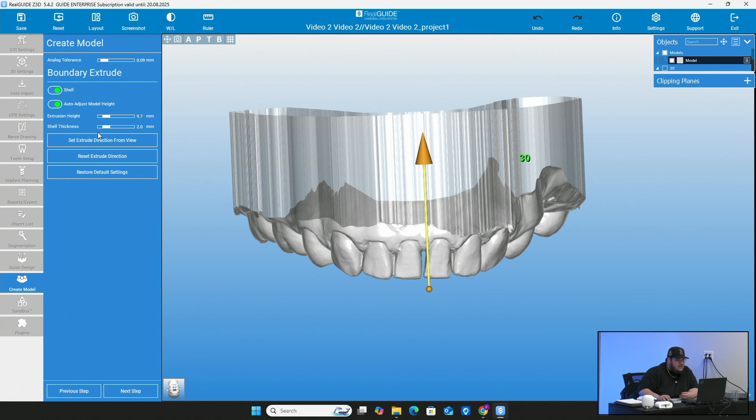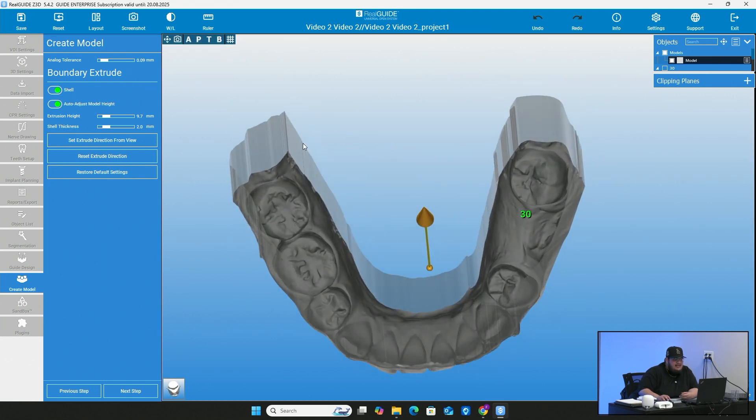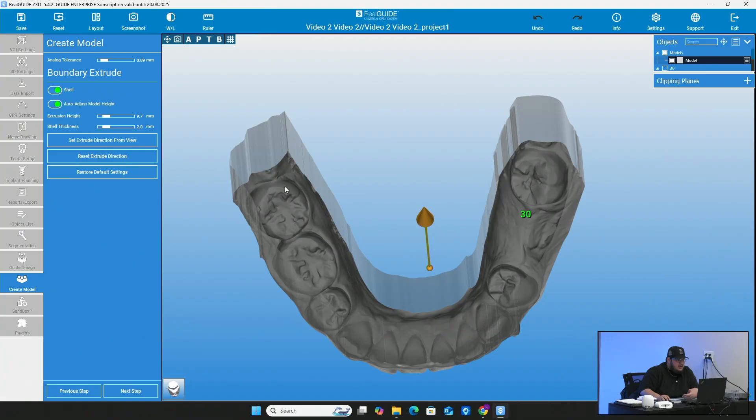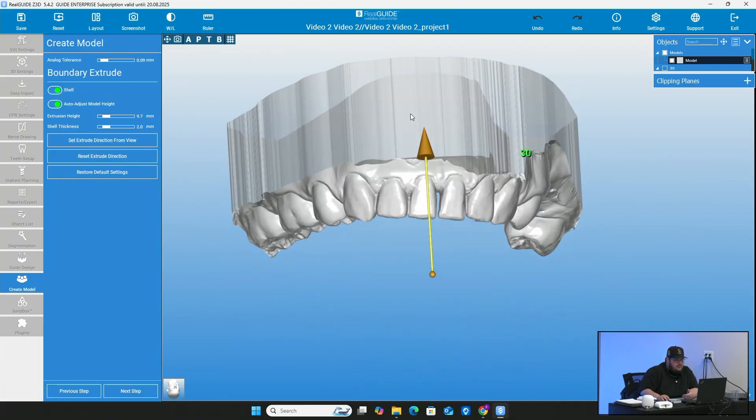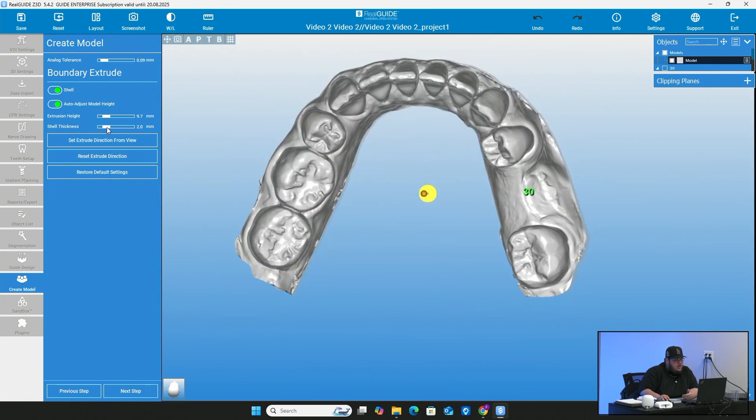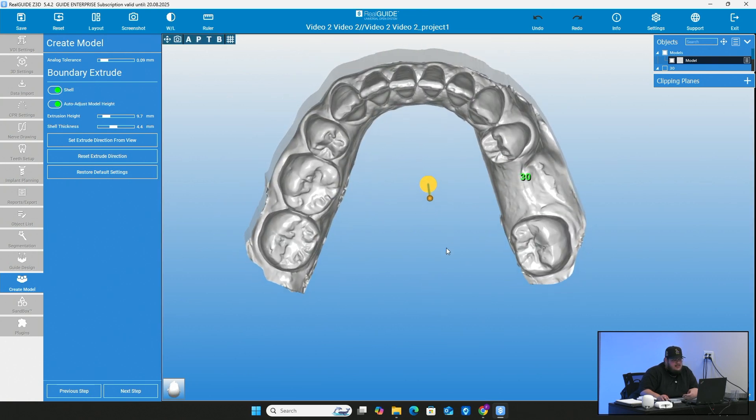Then you have your shell thickness. So what this is, is that kind of here at the bottom, it's kind of how thick you want those walls to be. So you can make them very thin, so it's less of a material that's going to be covering that hole. The only thing is that if you do that, it could become a little bit more fragile, could break, especially like for us, when we clean these, we use a power washer. So if it's a little too thin, our power washer can be so strong that it can actually even break it. So I keep it at 2.0. That's a pretty good deal.